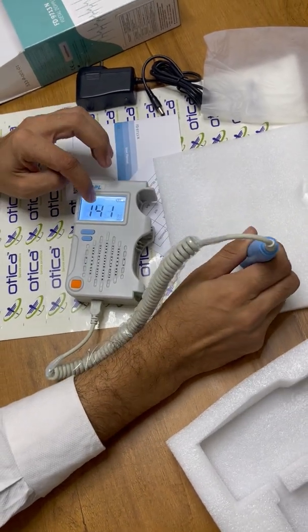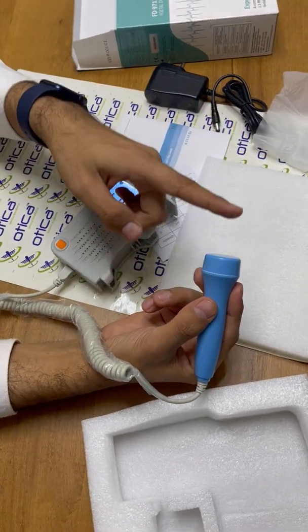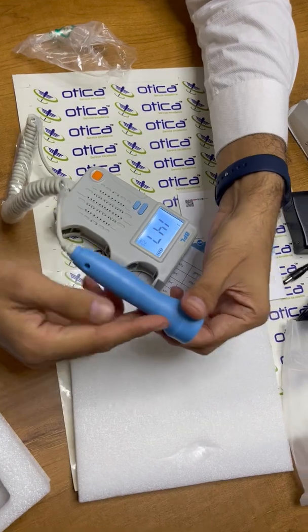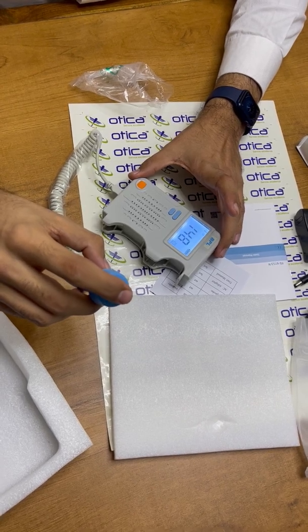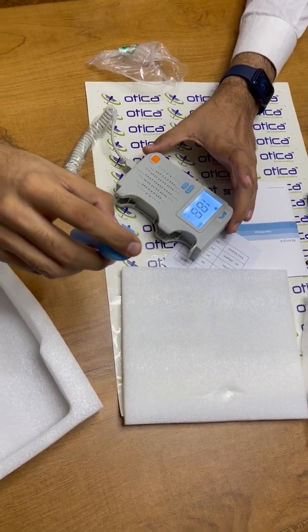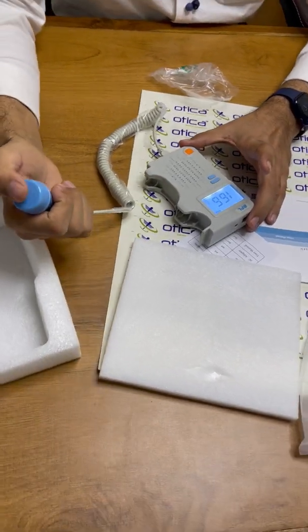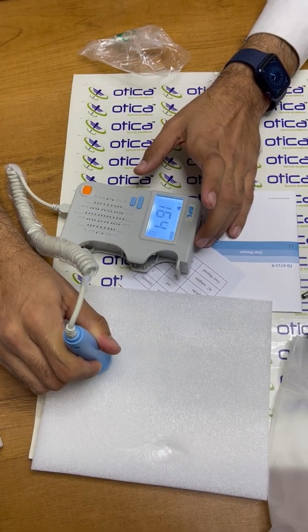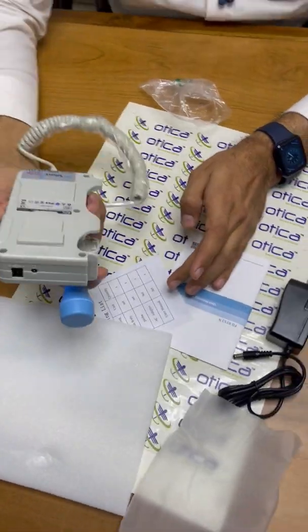This is just an indication of what we are applying — we are tapping on this, which means the device is detecting some movement inside. So this is how, whenever you find a heart rate on the belly of the patient, you will hear this type of continuous tapping noise. Whenever you place the device on the belly of the patient and there is movement, it will give you a continuous sound of the baby's heartbeat. This is how you can utilize this device.